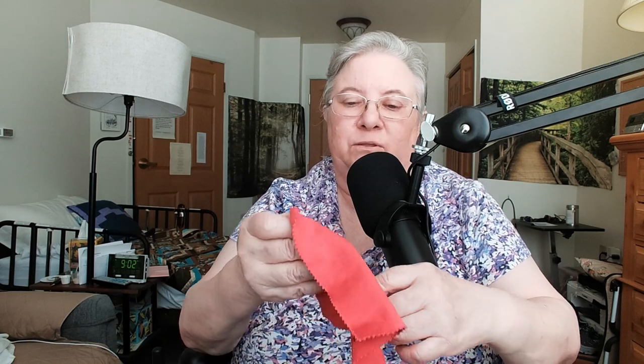Sand and dust of all kinds — that's why it's good to wipe them down maybe once a week with a little cloth. This cloth is actually for glasses, but I just wash it over and over and use it to wipe my processors down to get the dust off, especially when I lived in the desert in Arizona. There was a lot of dust there, sometimes high winds and dust storms, so I made sure I cleaned off the microphone areas. If you're at the beach or whatever, when you get home it's good to wipe them off.